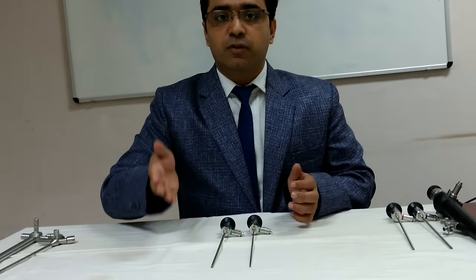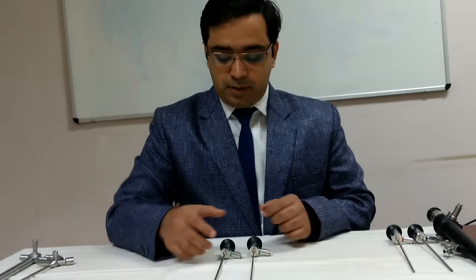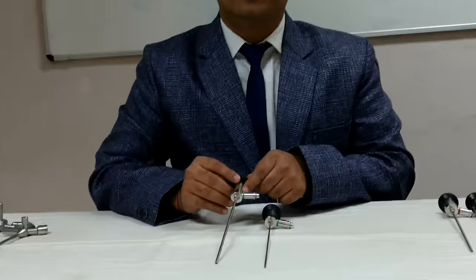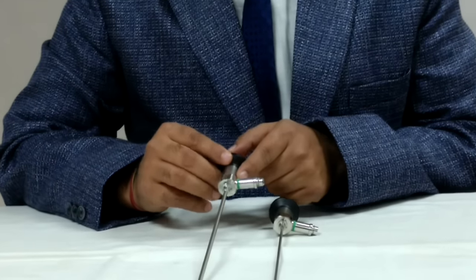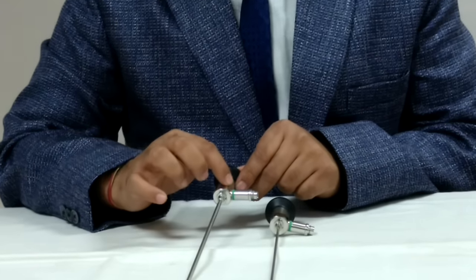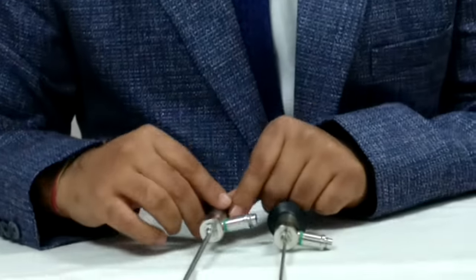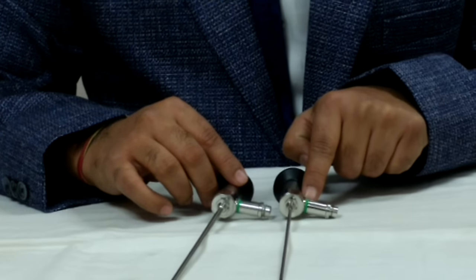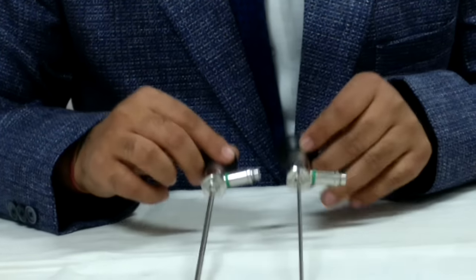that how will you differentiate what endoscope they have given you. This green ring. This is basically color coding of endoscope. Every endoscope will have similar or same color coding. Any green coding means 0 degree. So these both endoscopes are 0 degree endoscopes.